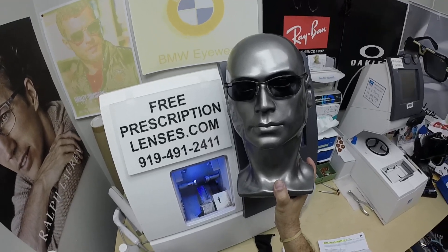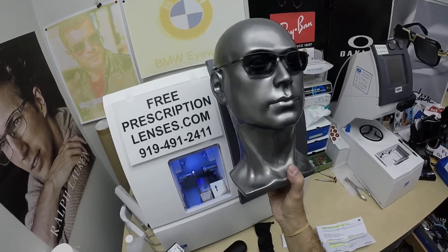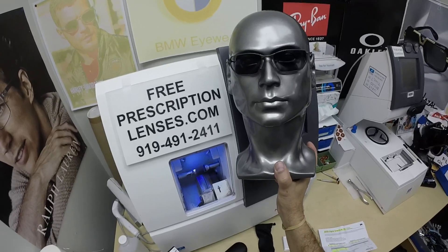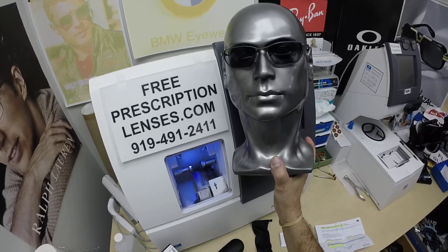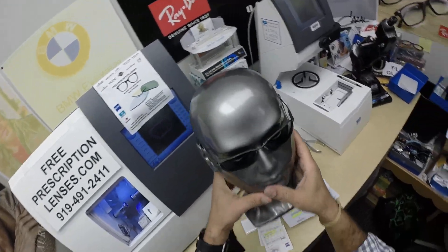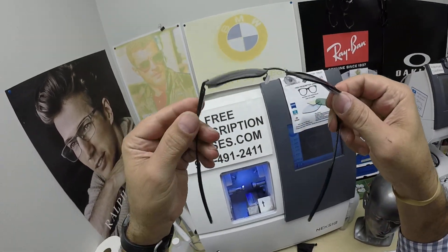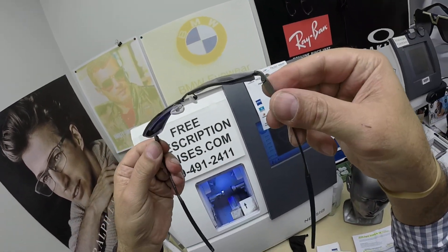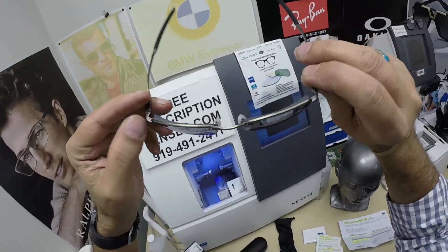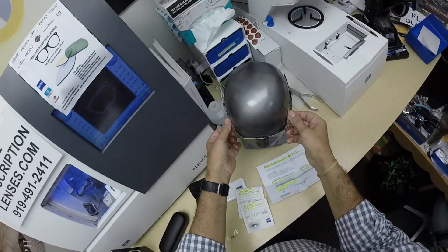The premium DuraVision Platinum Anti-Glare, which has the least amount of reflection and the least amount of glare angles, adds $99. The Smart Life DigiBoost is also $99. The 1.67 index added $59 to thin out the lenses. This is the fifth or sixth pair of lenses Dan has gotten from me in the last year or two, so thank you for your repeat business, Dan — that tells me I'm doing something right.